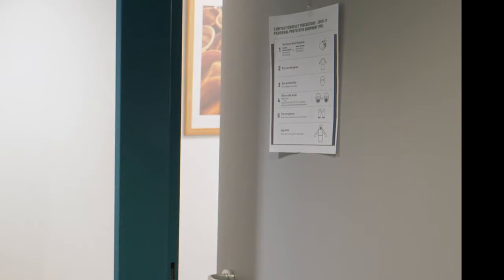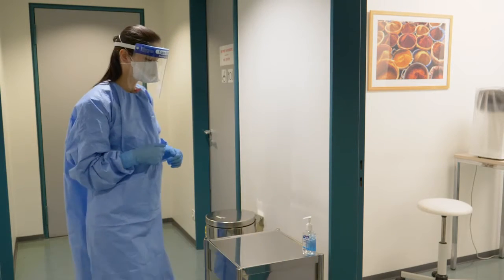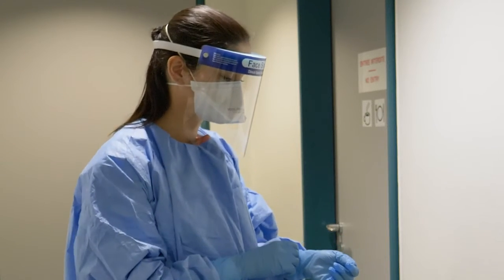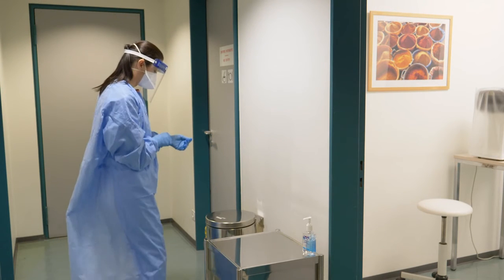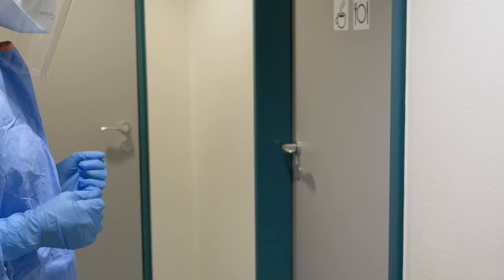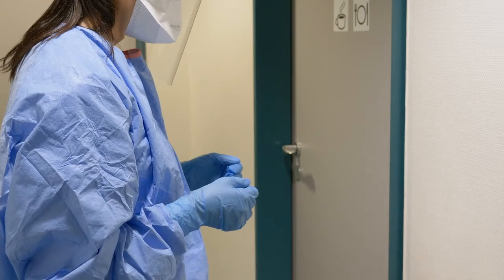You are now ready to remove your PPE. Keep in mind that the removal of PPE poses the highest risk of transmission to healthcare workers. Make sure to avoid any contact between potentially contaminated PPE and your clothes, skin, and especially your face. Respect the order indicated, in front of a colleague or mirror if possible.